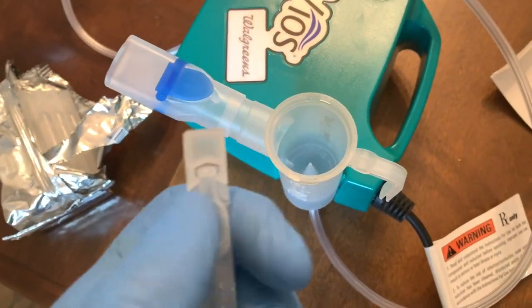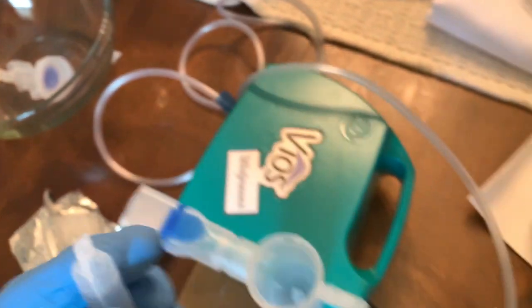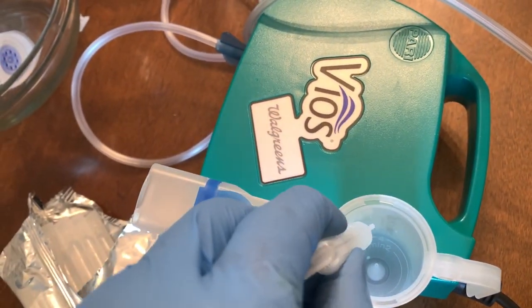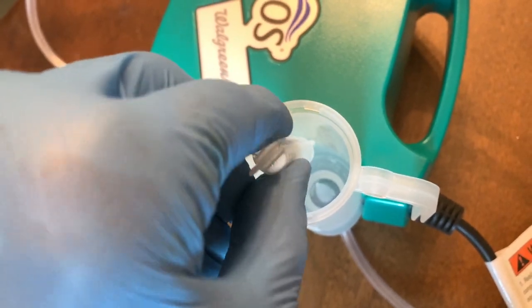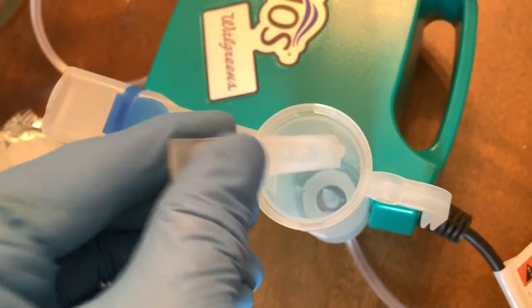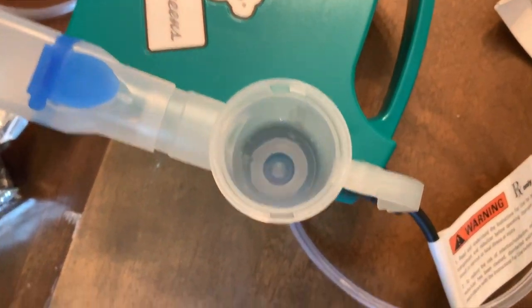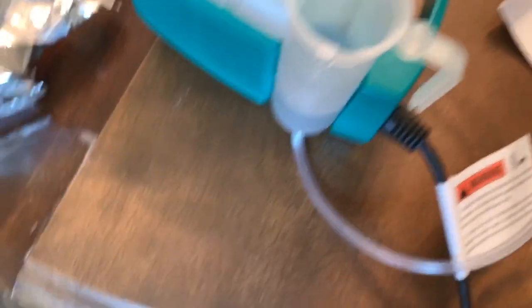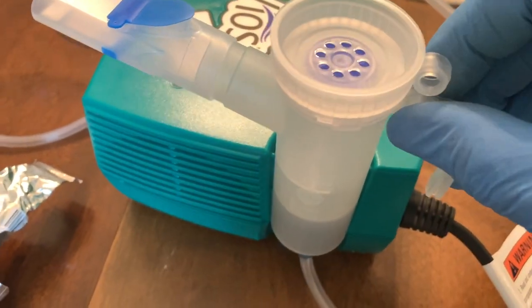So to get the medicine in there, what I've got to do is pop the top — just pop this off like this. Then I'm going to turn it upside down and just drip it into the side; I've got to kind of squeeze it. Pretty much got it — that looks pretty good. Then we've got to put our top on. See that right there? That's going to fit right over that cone down there. The cone on the end here is going to fit right over that cone there. So we're going to go ahead and slide that baby down on there, pop it on, and we're ready to rock.